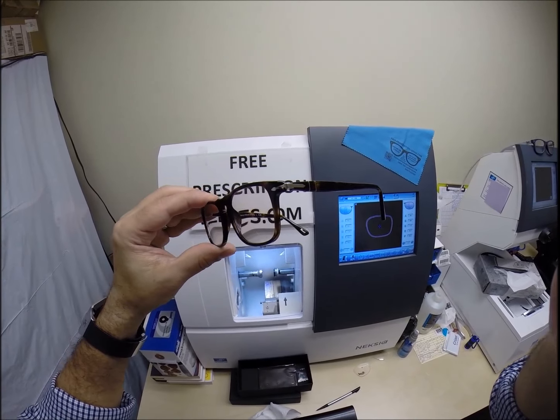All transition lenses will get dark on day one. Give them two weeks of exposure and they're going to continue to darken every day for the first couple weeks. The only time Transition Signature 7 lenses like mine will not work is if you're behind the windshield of a car - your windshield absorbs all the sun's harmful ultraviolet rays. Transitions Extra Active will turn about 30 to 50% in a car while mine do nothing. They're also temperature sensitive - they'll get darker when it's 80 degrees and below than when it's 95 and above. Extra Active will get darker in hotter weather than my Signature 7 lenses.